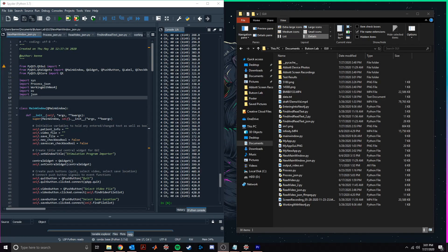Hello everyone. In this video I will be demonstrating the use of our automated device reader software for deep brain stimulation devices.